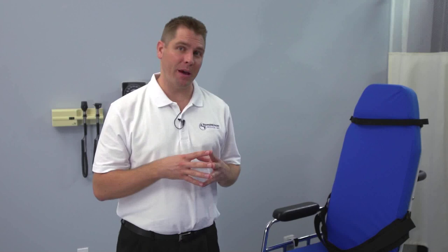Now let's talk about power. The chair comes with two state-of-the-art, high-capacity batteries and a wall mount charger. While one battery is on the chair, the other is charging. This provides continuous power for the chair when needed.